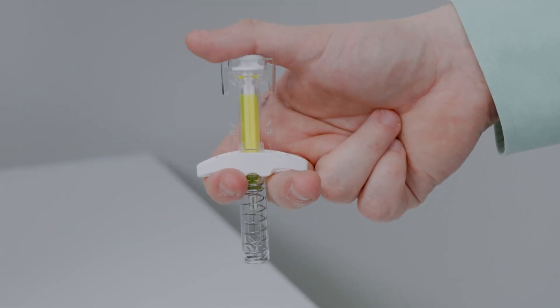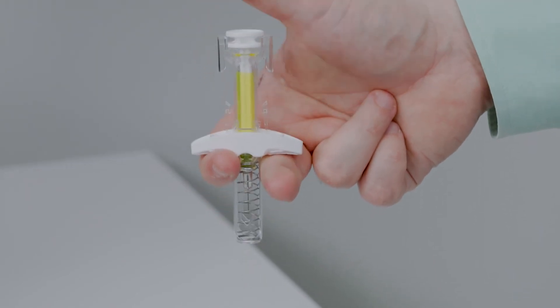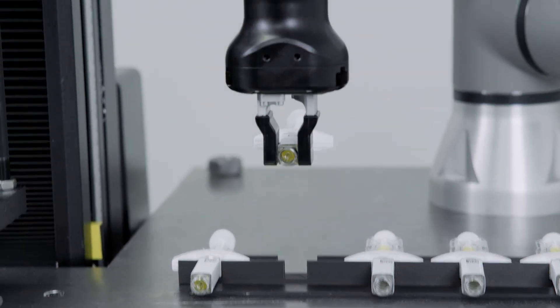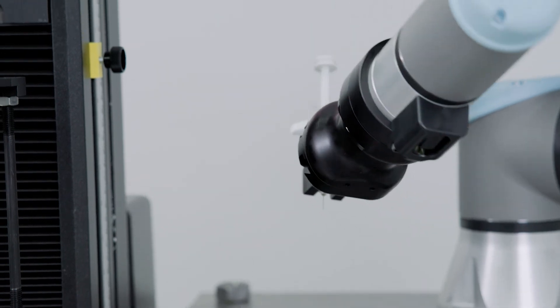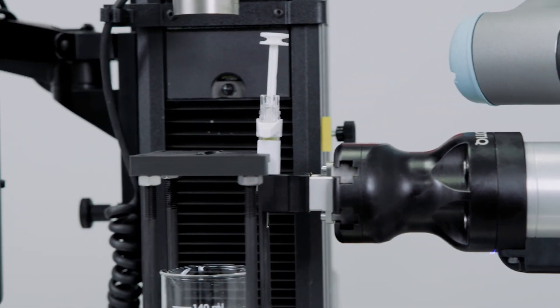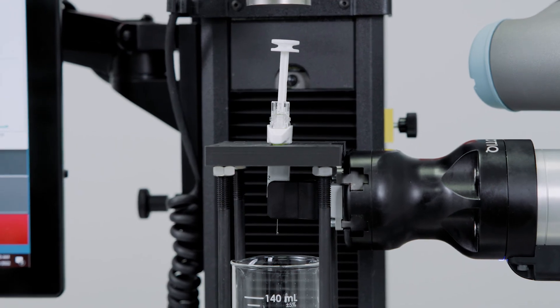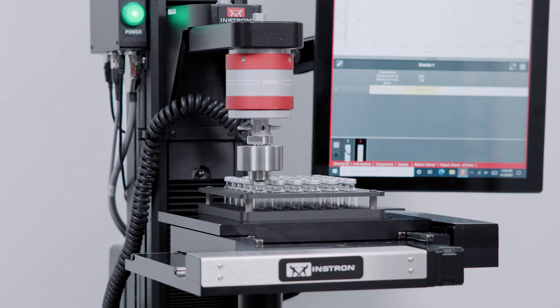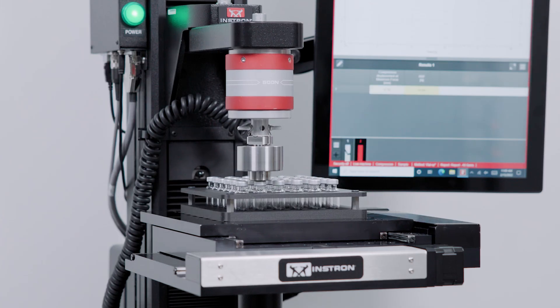In labs where staffing resources are constrained, automation can be utilized to reduce reliance on test operators. Depending on the specific application, cobots or XY stages can be leveraged to improve lab efficiency.